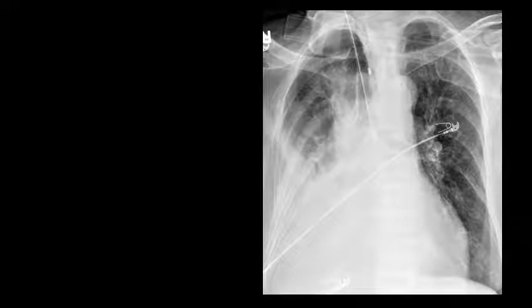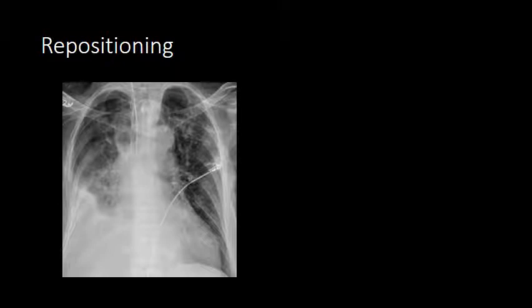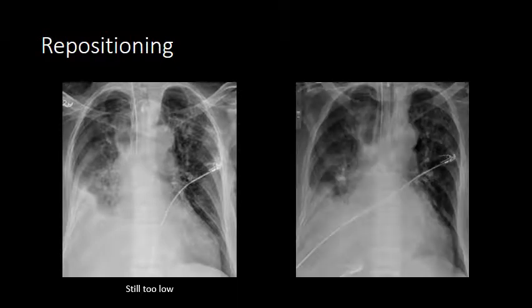Take a look at this example. Where do you think the endotracheal tube terminates? We see the thick white line of the endotracheal tube appearing to be directed just past the carina into the left main stem bronchus. A subsequent radiograph shows repositioning of the endotracheal tube, but I believe it is still too low, as the tip appears to project right at the carina. A follow-up radiograph now shows the tip approximately 5 centimeters from the carina, in an appropriate position.